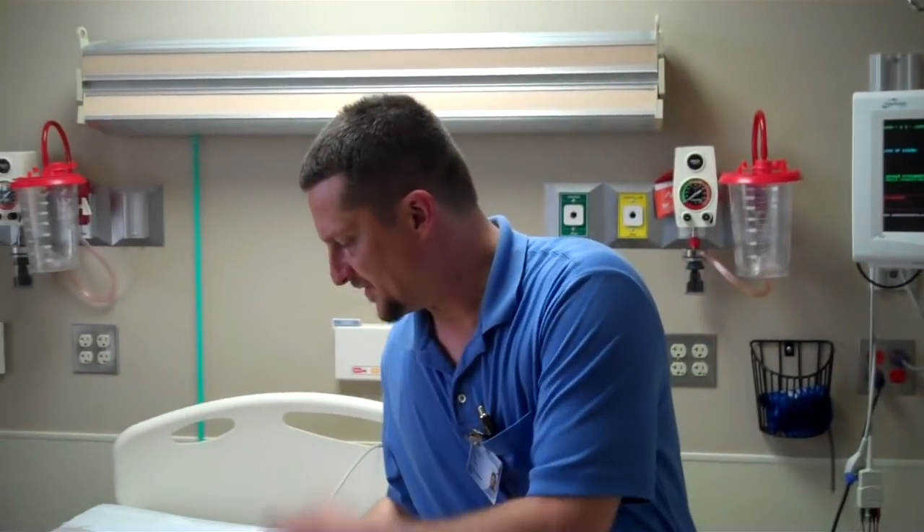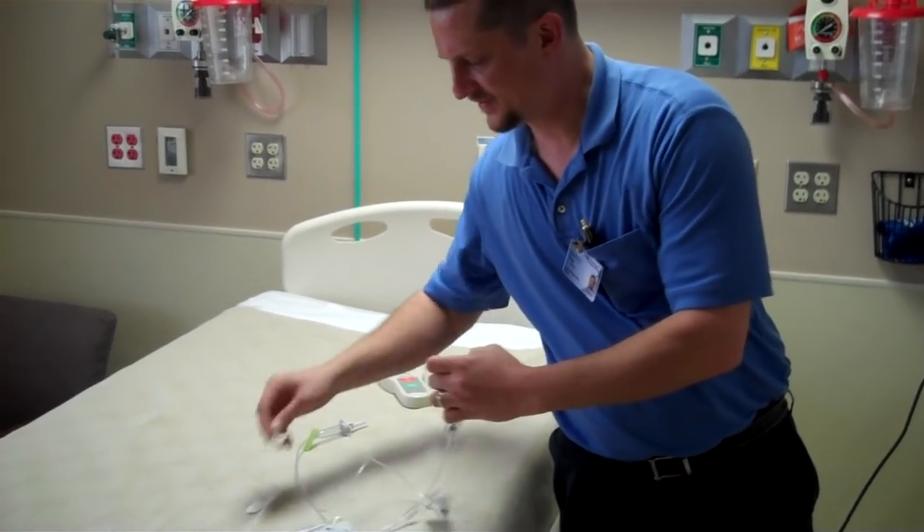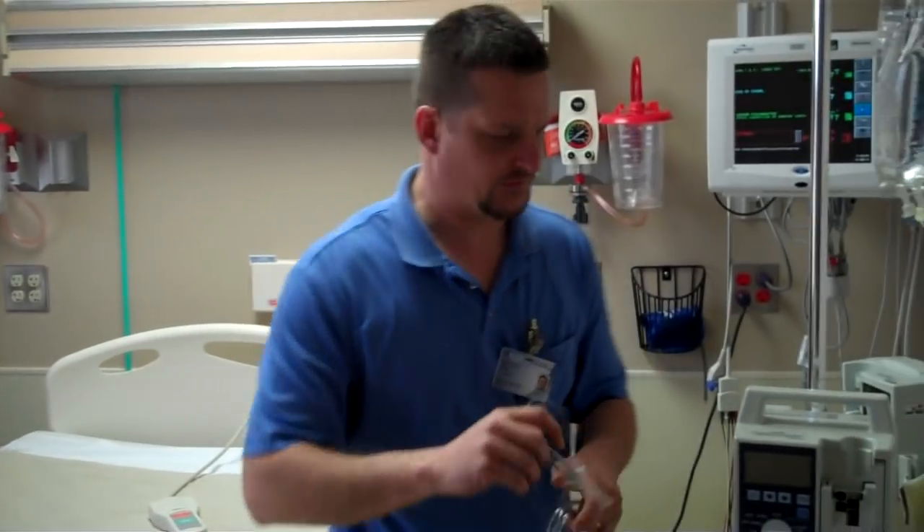Hello and welcome to the Community Hospital Training Channel. I'm going to demonstrate today the initial setup for the Hospira Plum Family of Pumps. The first one we're going to look at today is the Plum XL, and there's a new procedure instituted by the FDA that necessitates checking our alarms before each initial use.